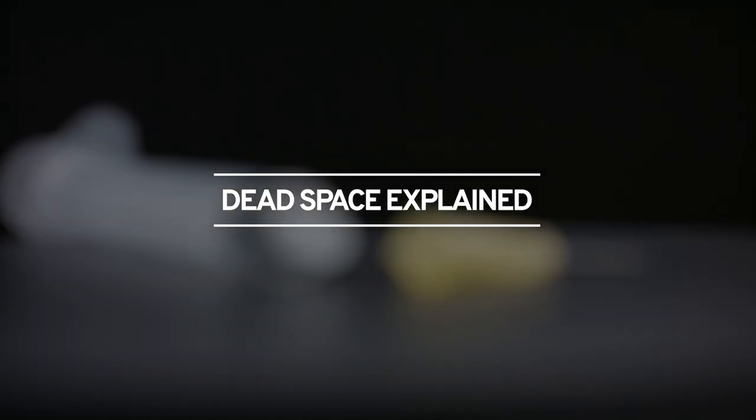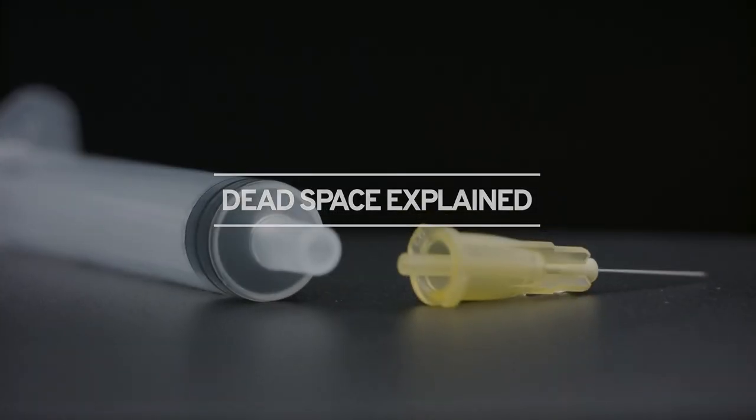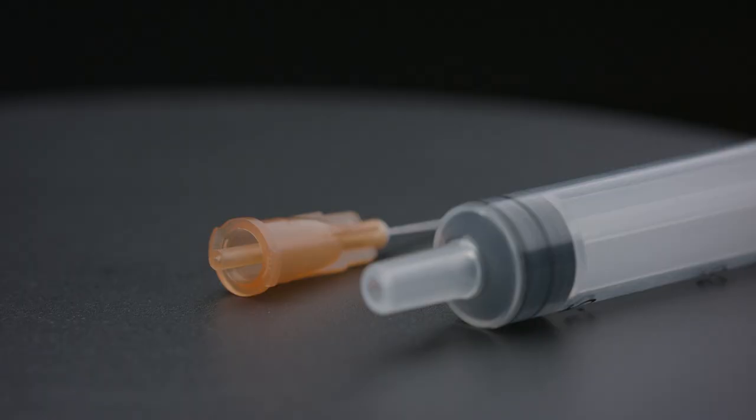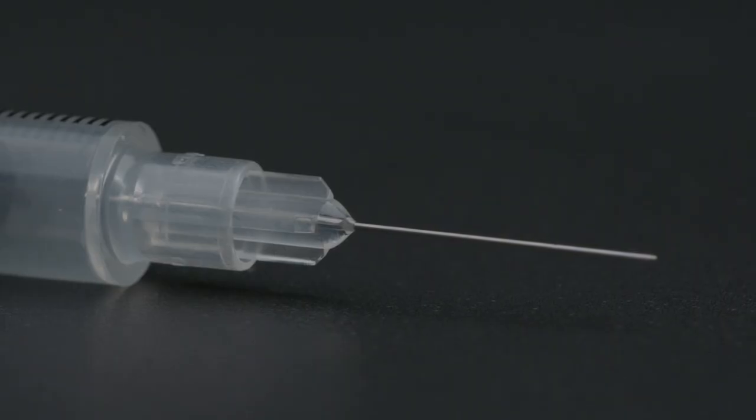This film will explain the meaning of the term dead space in injecting equipment and clarify the terminology that we use to describe the four different types of needle and syringe combination that are available from needle and syringe exchange programmes.